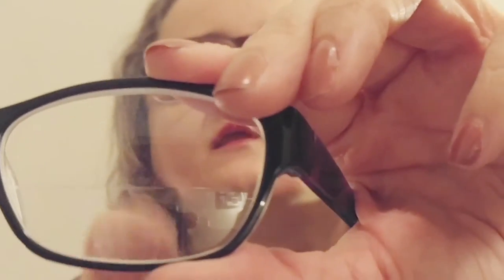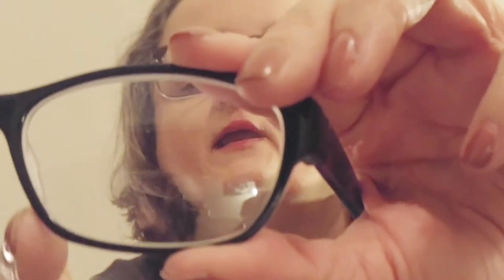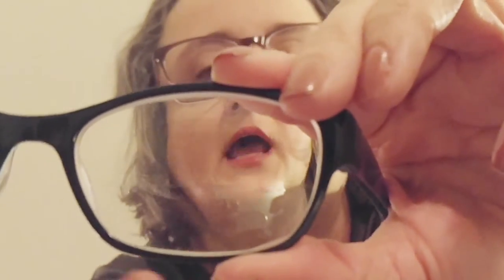These are purple, and you look very good in them. I thought they would be kind of a fun thing. I measured - I knew the measurements that I wanted. Can you see the bifocal part right here? The bifocal goes from here. When I ordered these at my eye doctor, I asked for the extended because I thought it would be good for computers, and I would only need the one pair of glasses. But when I'm driving, this is the driving part and this is reading, and so it's kind of problematic.